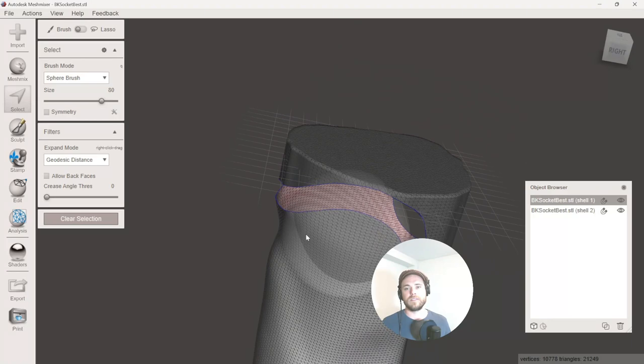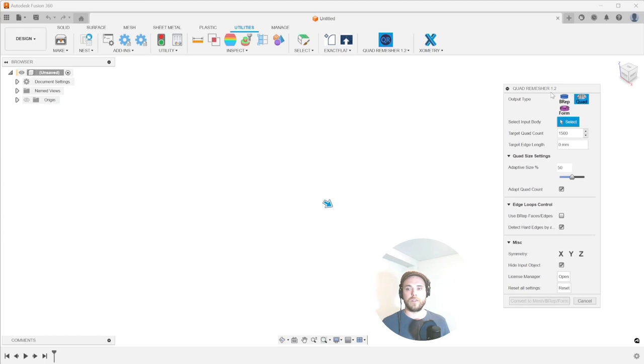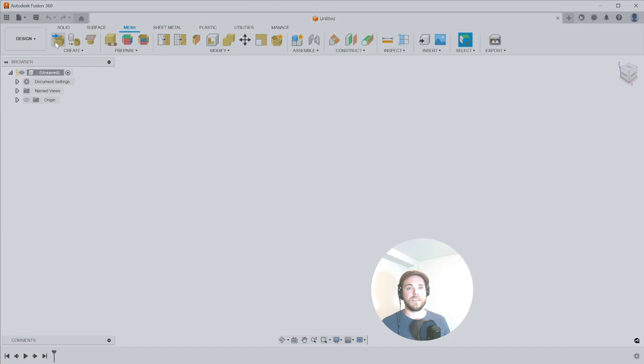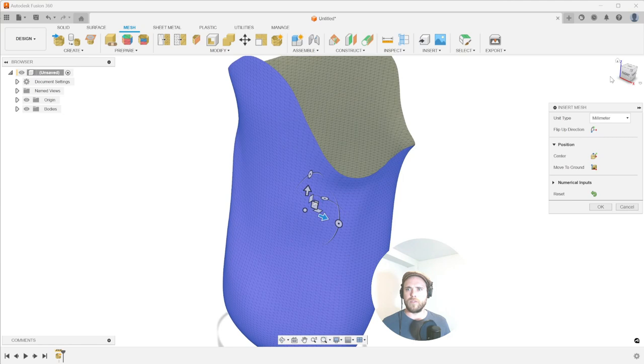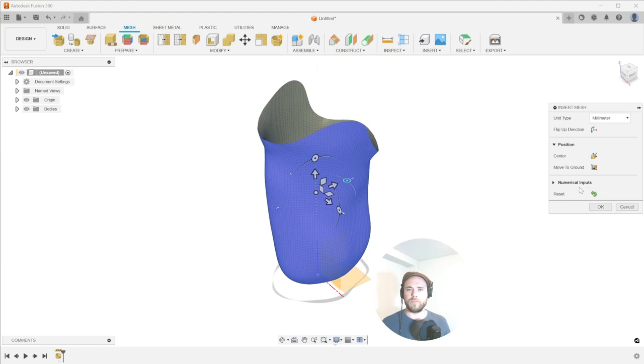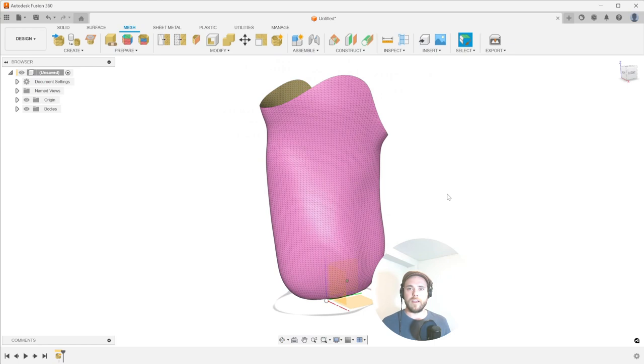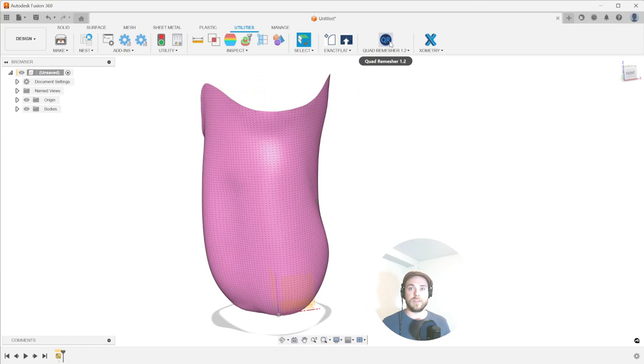Now that we've done that, let's hop over into Fusion 360. So before we open this command, we are actually going to need to bring in our mesh. So let's insert a mesh, bring it in from our computer. I'm going to bring in that one I just made and there it is. Where is my origin in relation to this? Okay, so I'm still going to try and follow my views. So I'm going to align this to the front view. I'm going to center it and move it to ground. Put that into a useful spot and let's hit okay. There is my mesh.